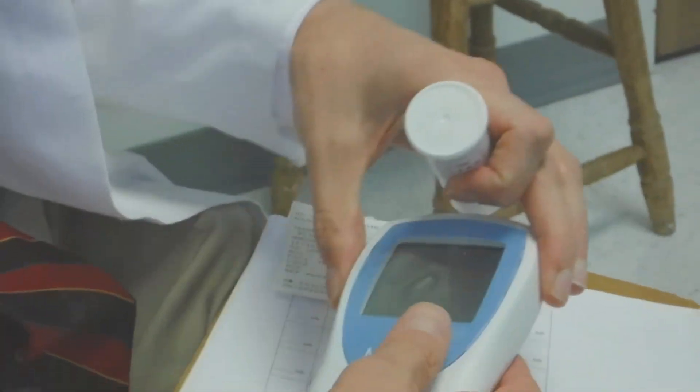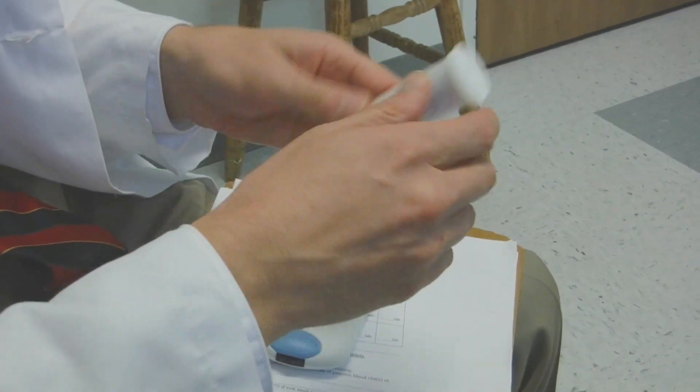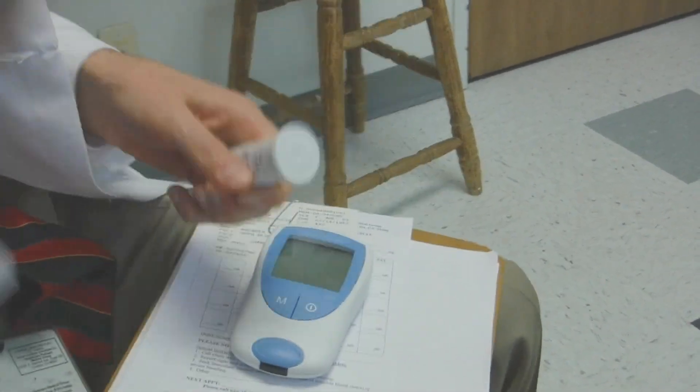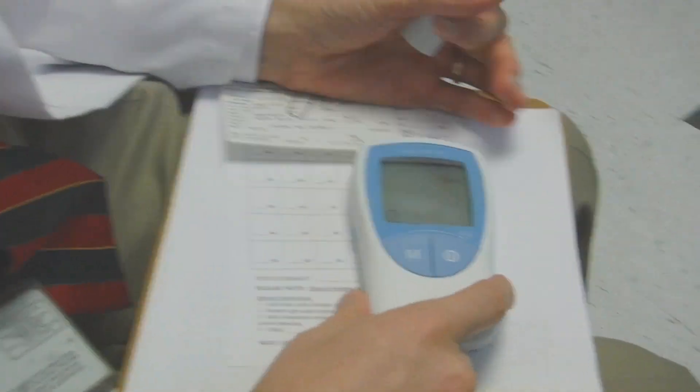Okay, he put new batteries in it just now before we came. Now there are a couple of options. You can put the test strip in and it'll turn on, or you can press that left button.